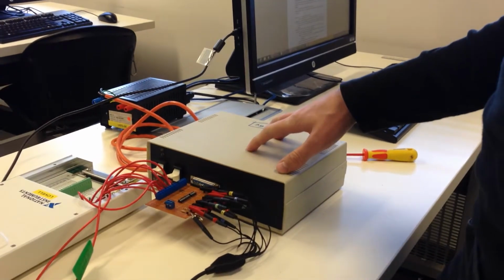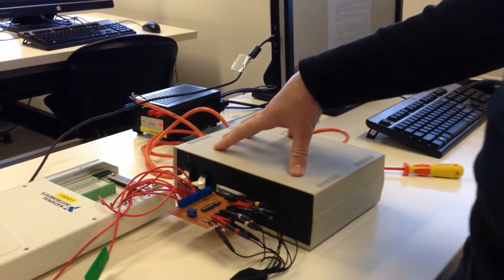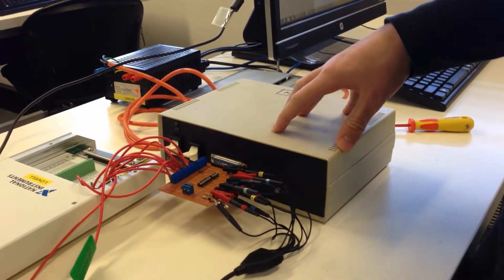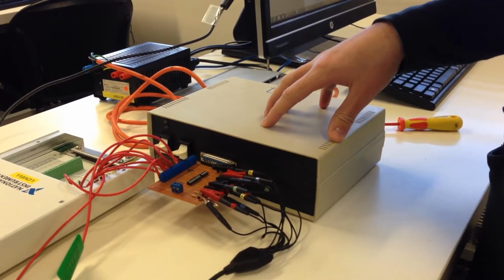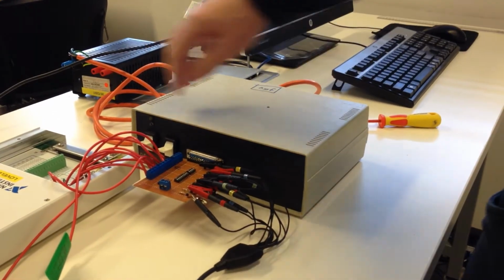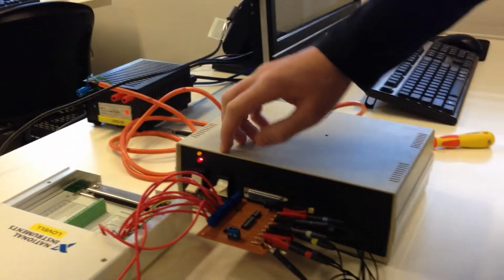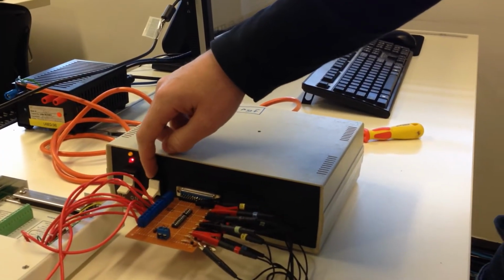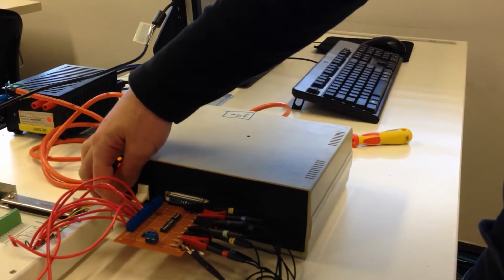This is the conductance catheter experiment. We have here a current supply. It supplies 50 microamps at 1500 hertz, so 1.5 kilohertz. We have a switch here to switch the power on, and this is to actually engage the current source. So both of these switches need to be down to drive the current.